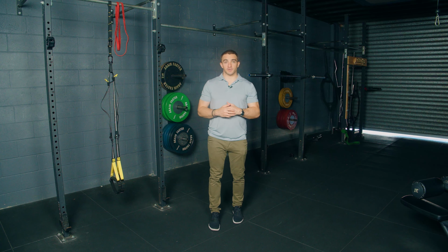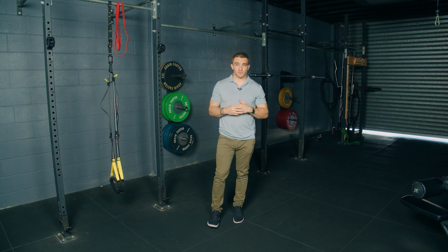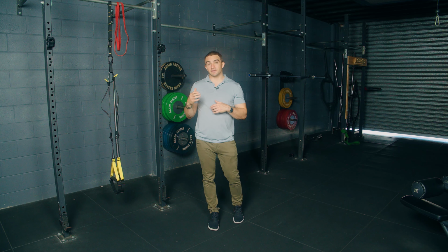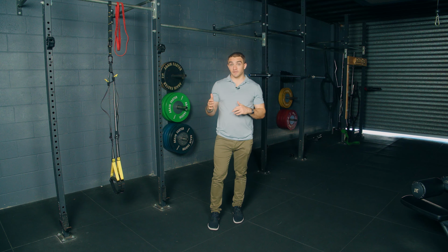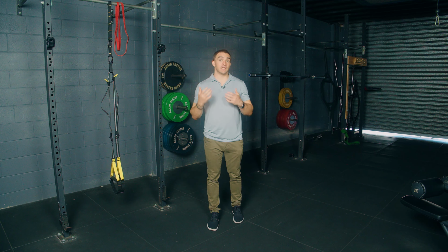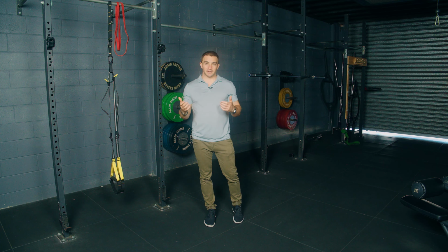Thanks to everyone who watched this prac. I hope that this provided a little bit of insight into other ways that you can use objective measurement technology to help enhance the decision making when it comes to shoulder rehabilitation. By no means is this an exhaustive list of everything you can do when it comes to objective measurement around the shoulder, but the idea is to give you a different perspective on what you can do, hopefully give you some things that you can add into your practice.